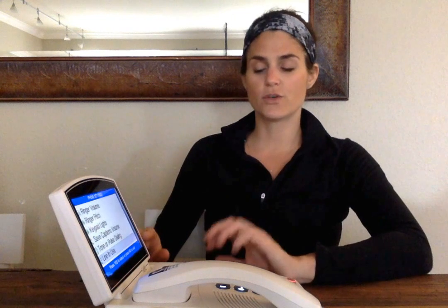Line in use. This allows it so that, say someone else in another part of your home answers the phone and they realize it's for you and you need to pick up this phone, it'll allow it so that the captions just start captioning once you pick up the phone. You won't have to wait to do anything.